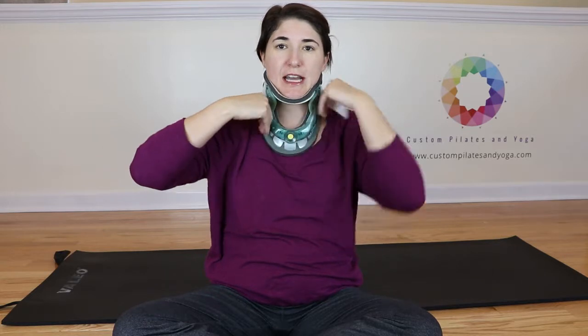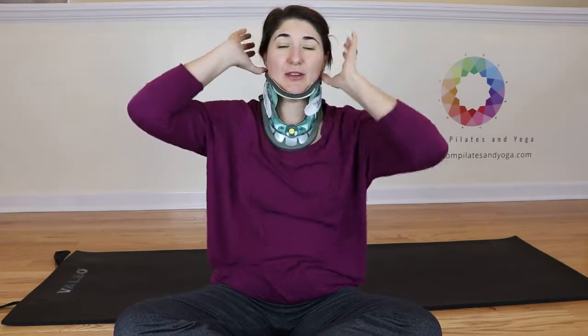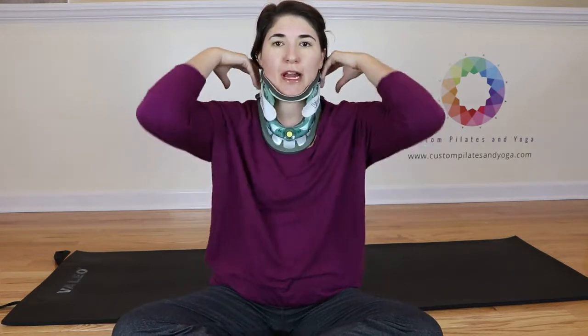So I get that set, and then I can bring my straps around. You might want to go back in and try to scoot your hair up out of the way, otherwise it does tend to get kind of crammed down in there. And then your neck collar is on and ready to go.